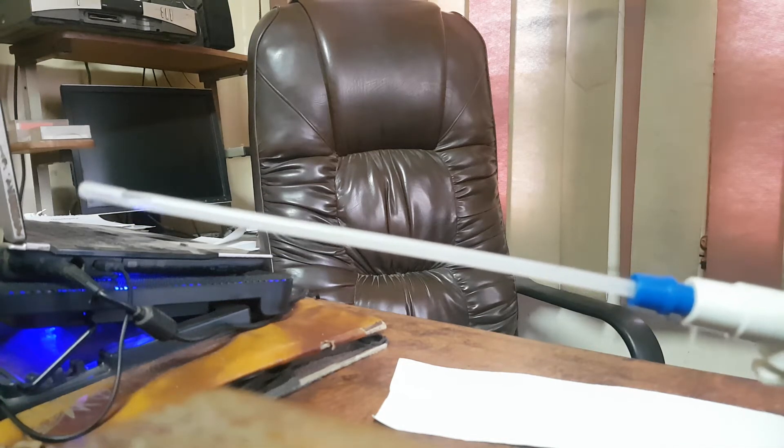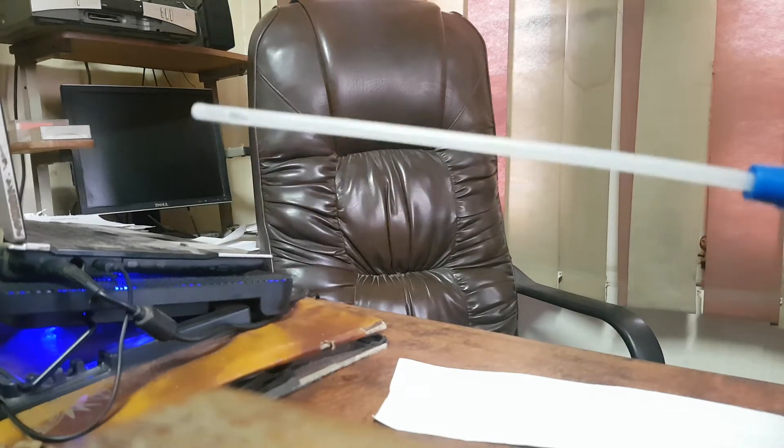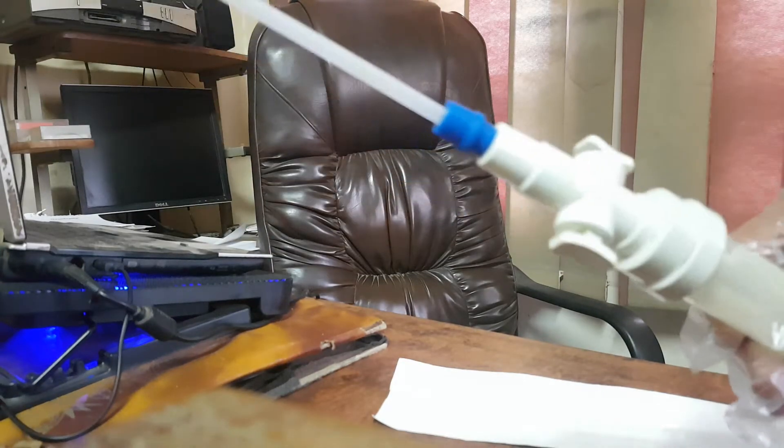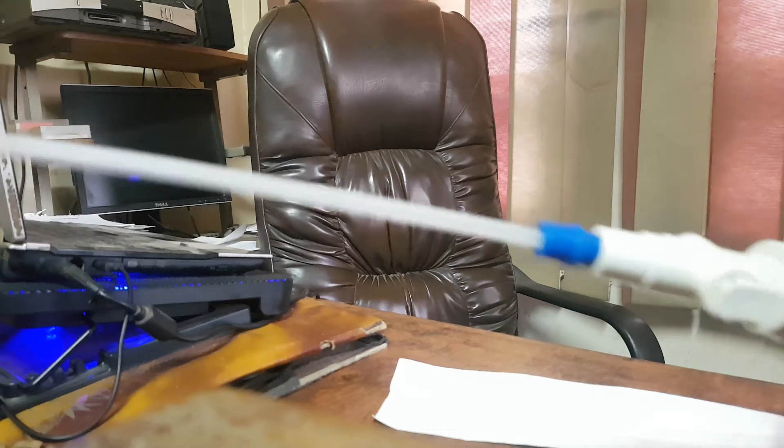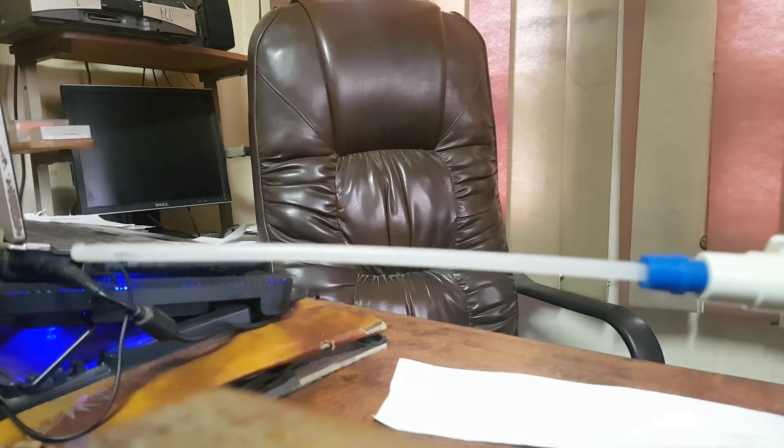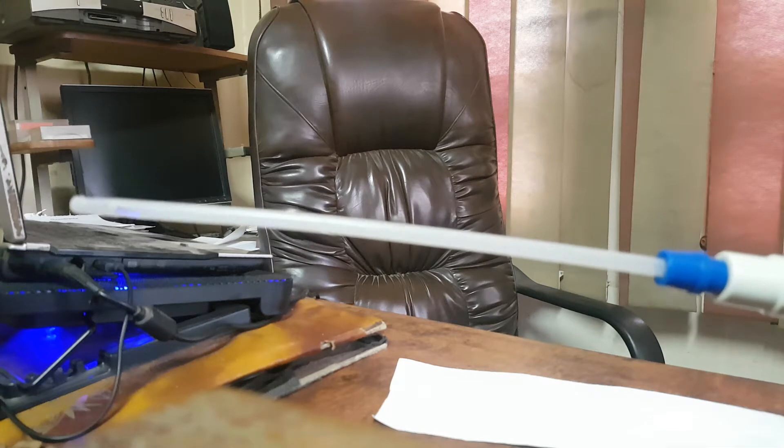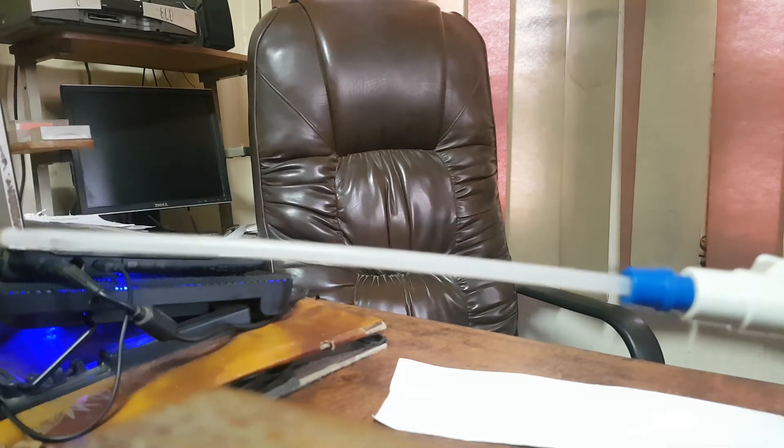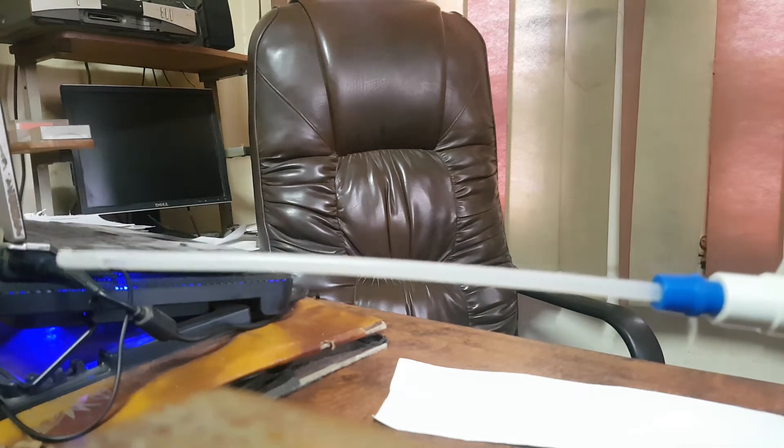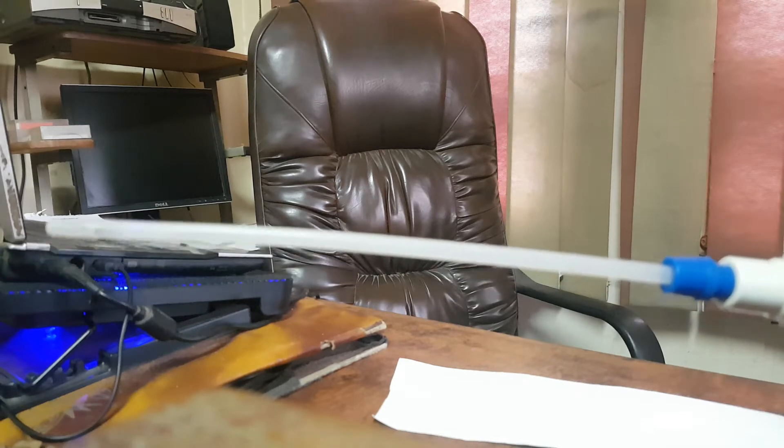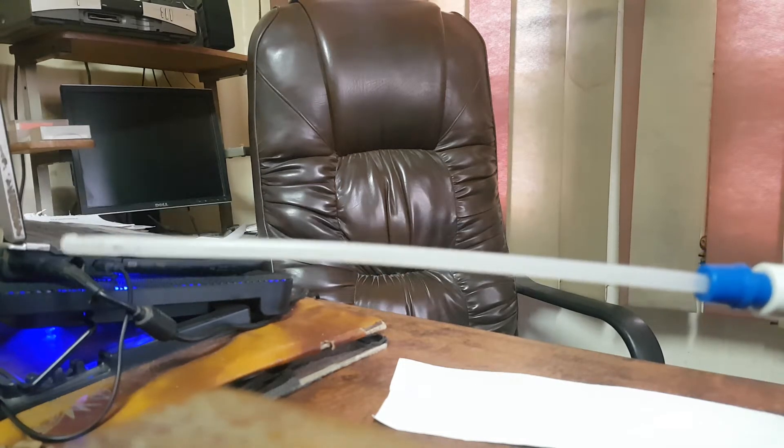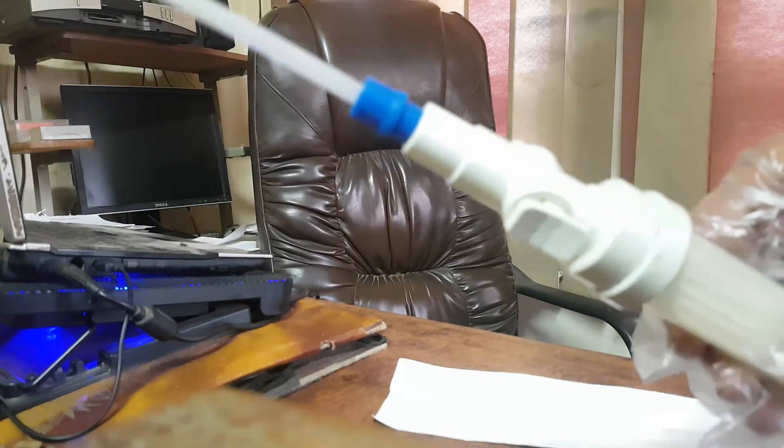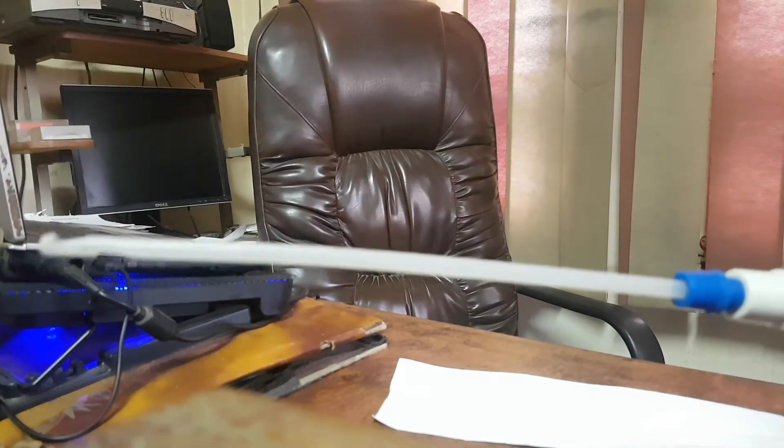Today, I want to explain the MVA. This is the MVA, as you see. This is manual vacuum aspiration used in case of management of abortion, like missed abortion, before 12 weeks gestational age pregnancy, in case of incomplete abortion to remove the intrauterine content.